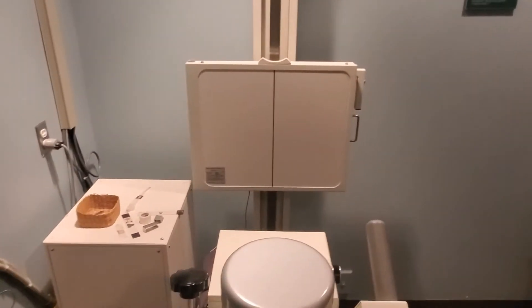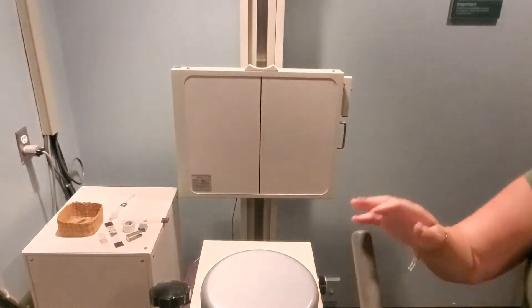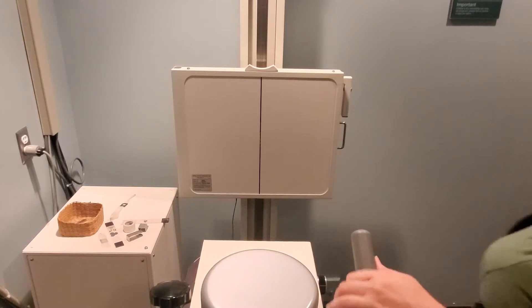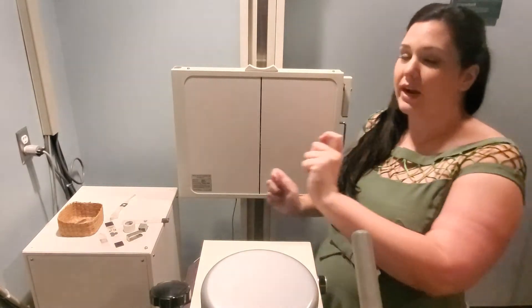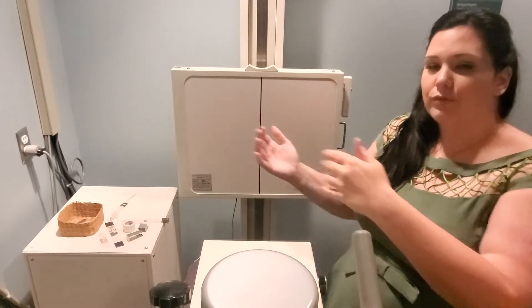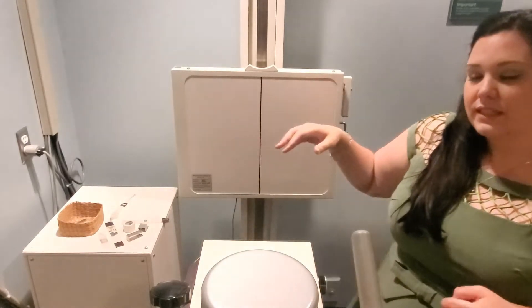Also at the lab, the light on the actual tube will light up when you're at 40 inches. Make sure the tube itself is in detent — the one in our lab moves in and out, so pull it back and forth and you'll feel it drop into position in the middle. When it clicks or drops, that's when you're in detent.